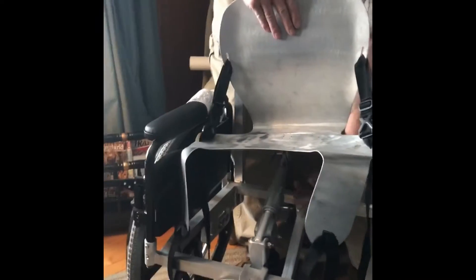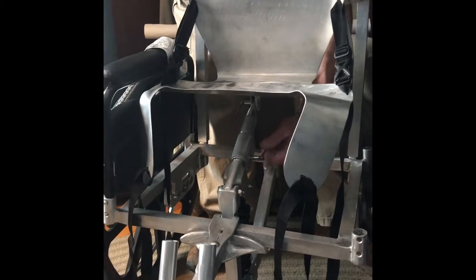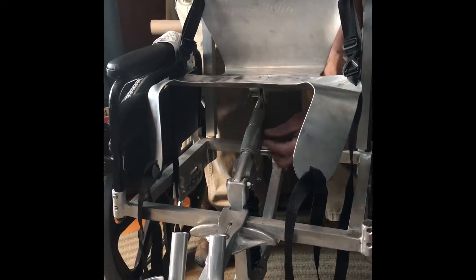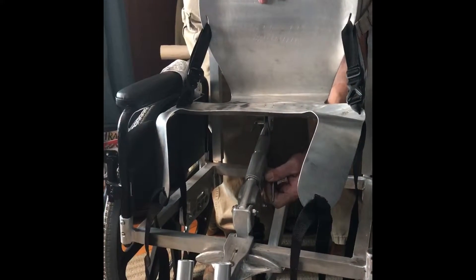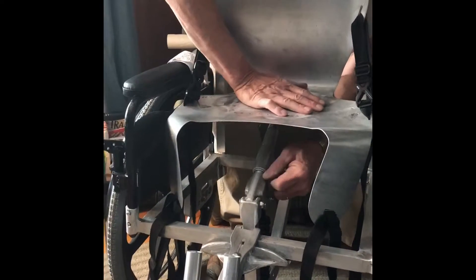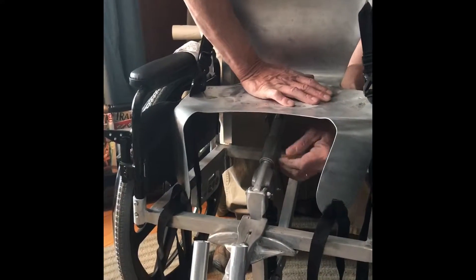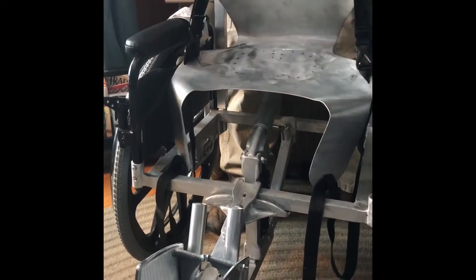So that you can swivel it — the mount and dismount. This will tighten it. Once she's in it, you find the location that she needs to be, then you secure it, and that's it. That should not move.